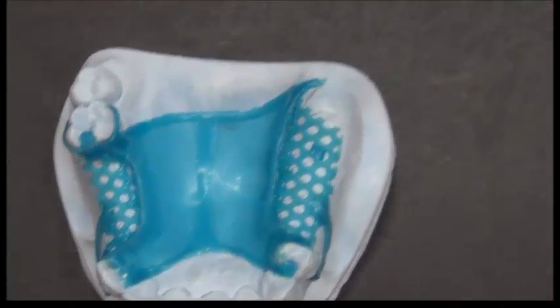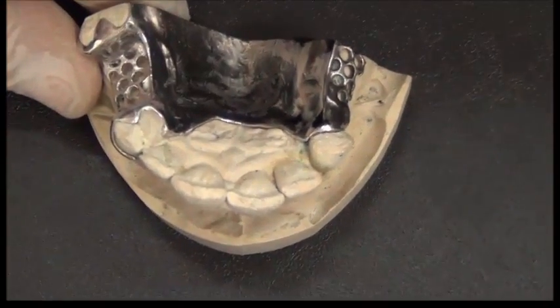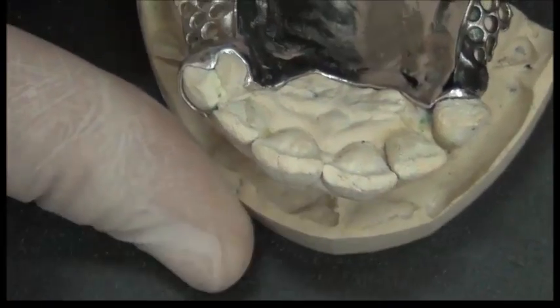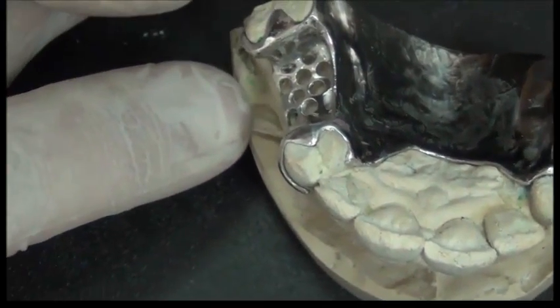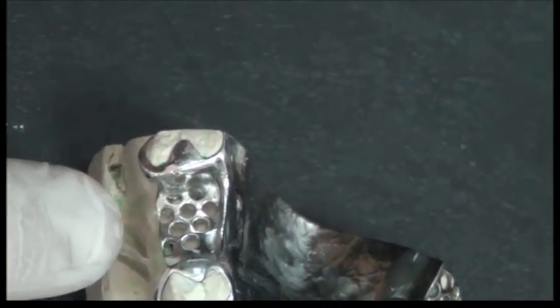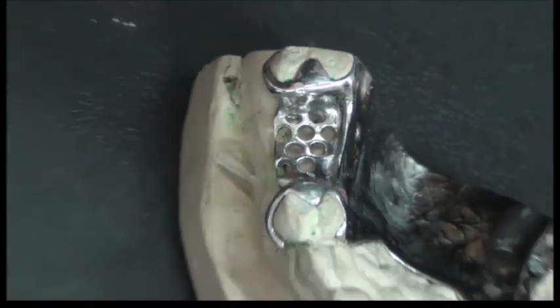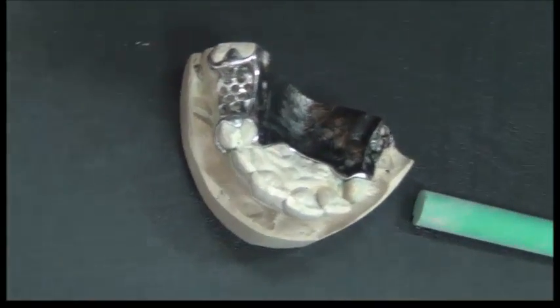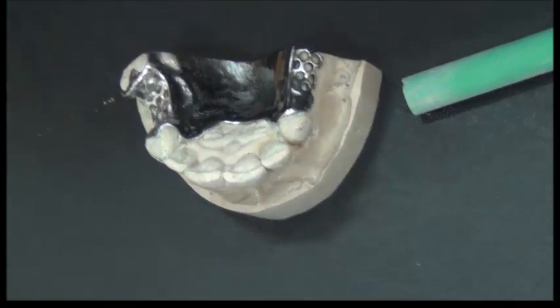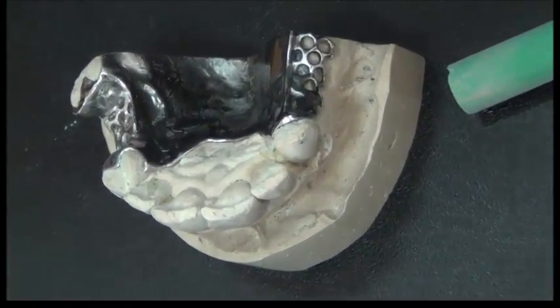On this final step, where the metal is ready, we might need a bit of surveying just to make sure that, if I'm going to extend the acryl into here, there are no interferences. So here, we will use the surveying as well to locate areas of interferences that might need to be removed before processing the acryl.